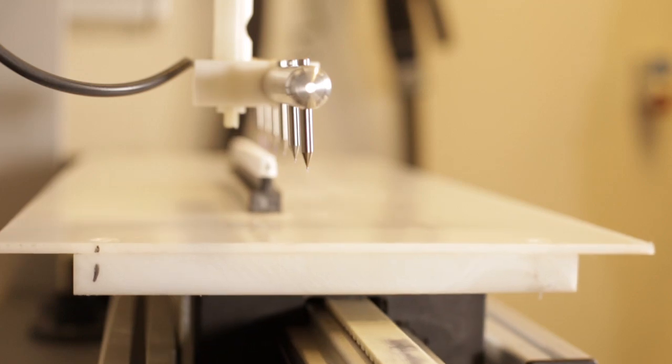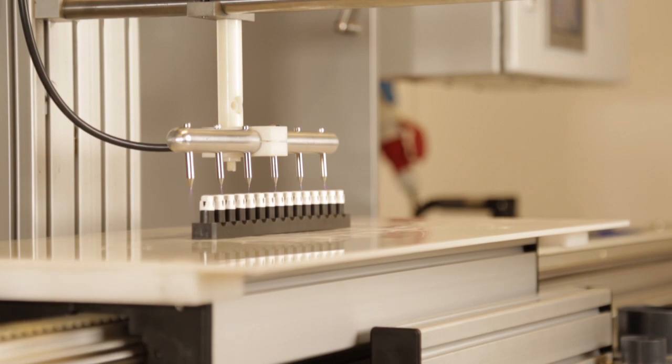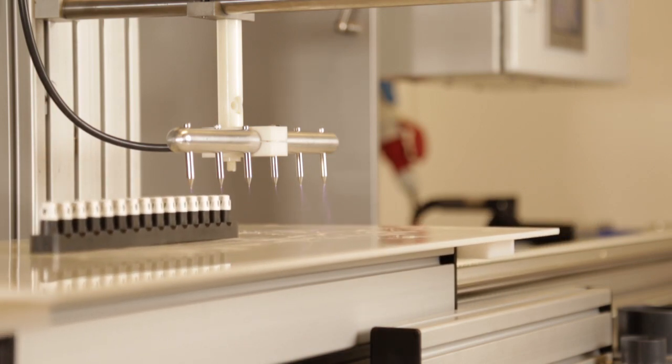We can perform the treatment in three different ways. The first is with our standard high-frequency corona, which utilizes a metal electrode positioned over the top of the needle hub as it passes through on a plastic mandrel.